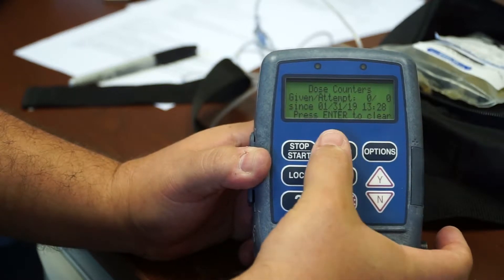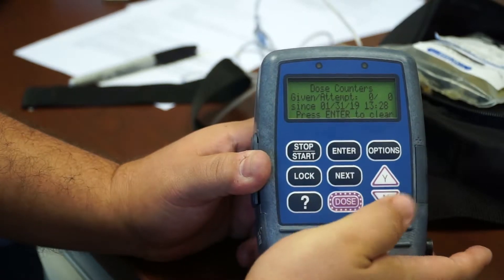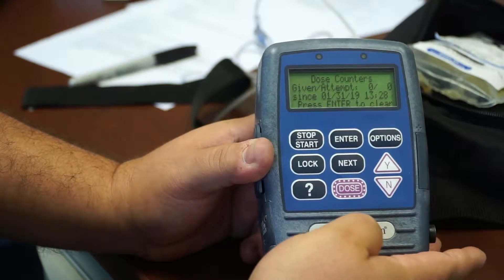And then the data as to how many doses were given. For here, it'll tell you how to clear it just by pressing enter and it'll clear the dosage data. But what I need to show you is how to reprogram this thing.